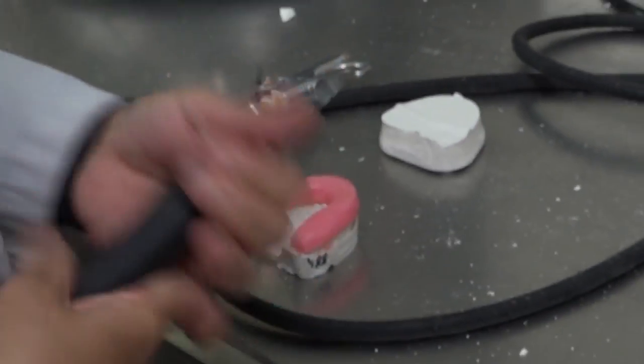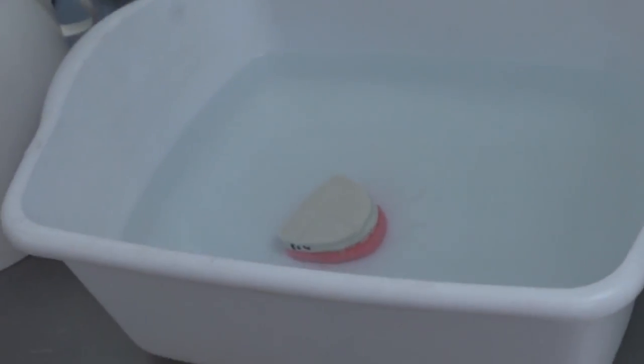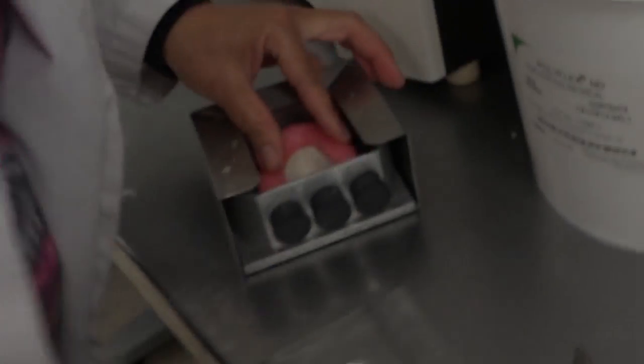Chisel off mold mount. Put in water to remove air bubbles, dry off, then put in clean mold frame.